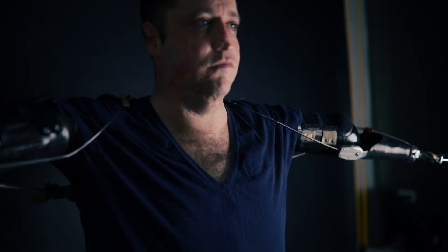One of the most common questions I get asked is, how do your hooks work? It's actually pretty simple. Let me see if I can explain it in under 90 seconds.